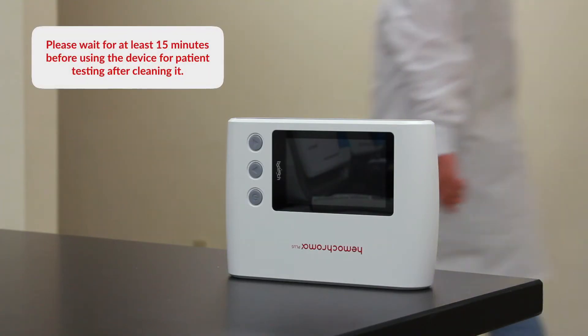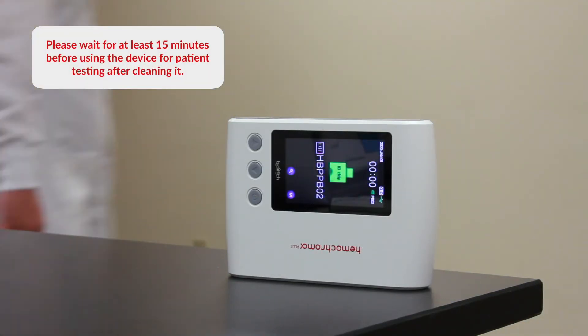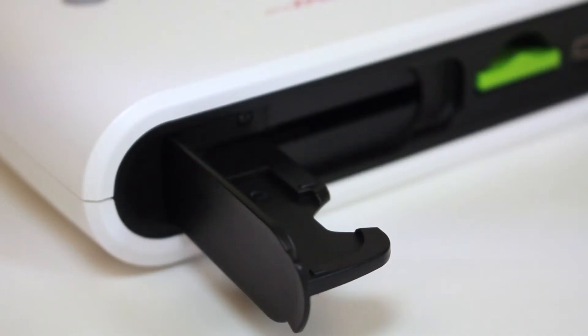Please wait for at least 15 minutes before using the device for patient testing after cleaning it. Make certain that the holder is completely dry before inserting the microcuvet in the holder.